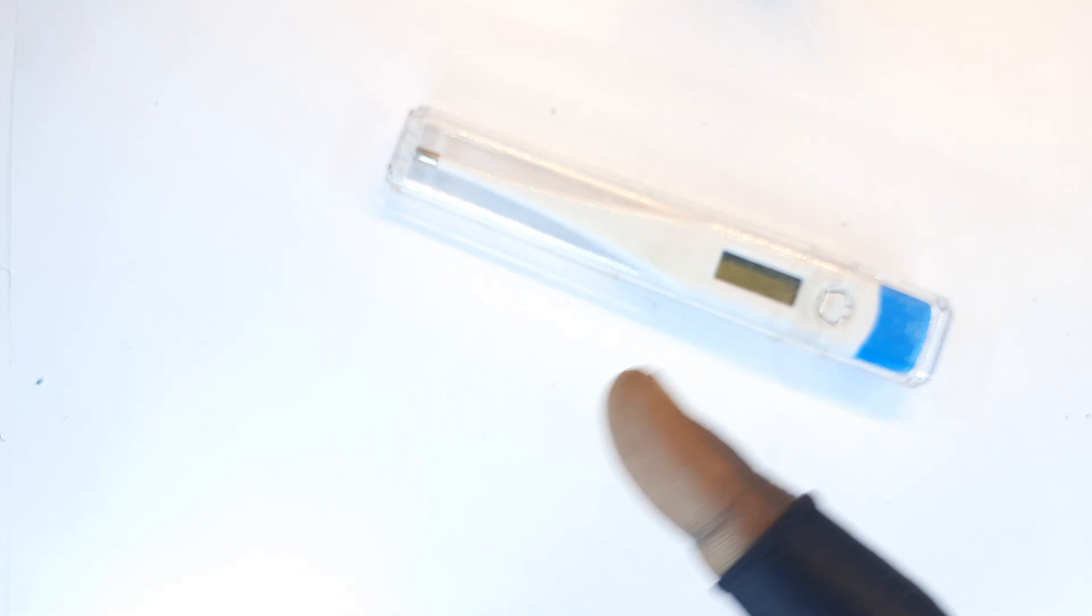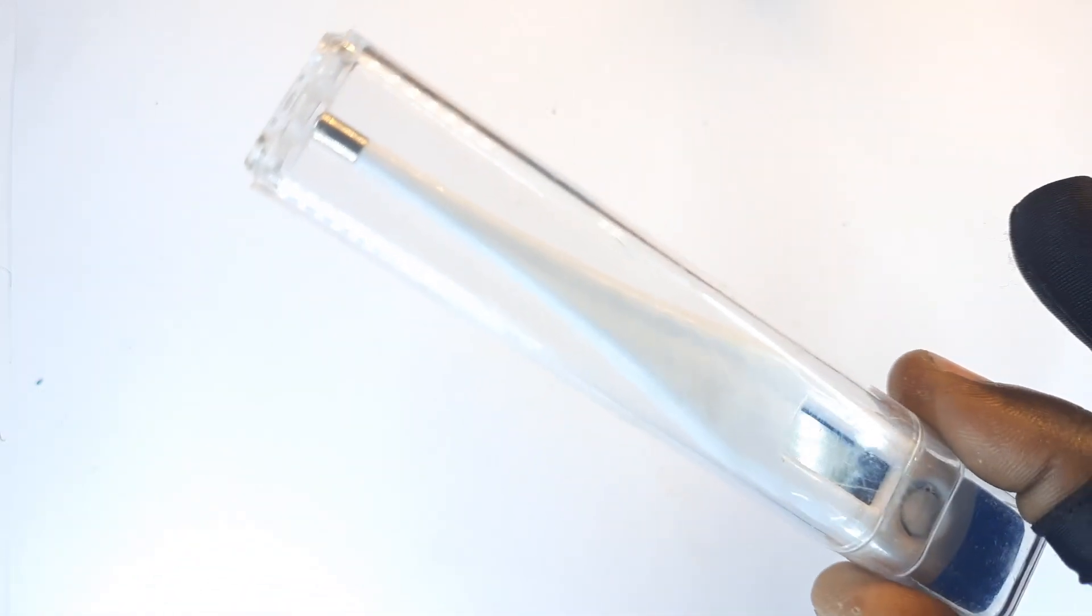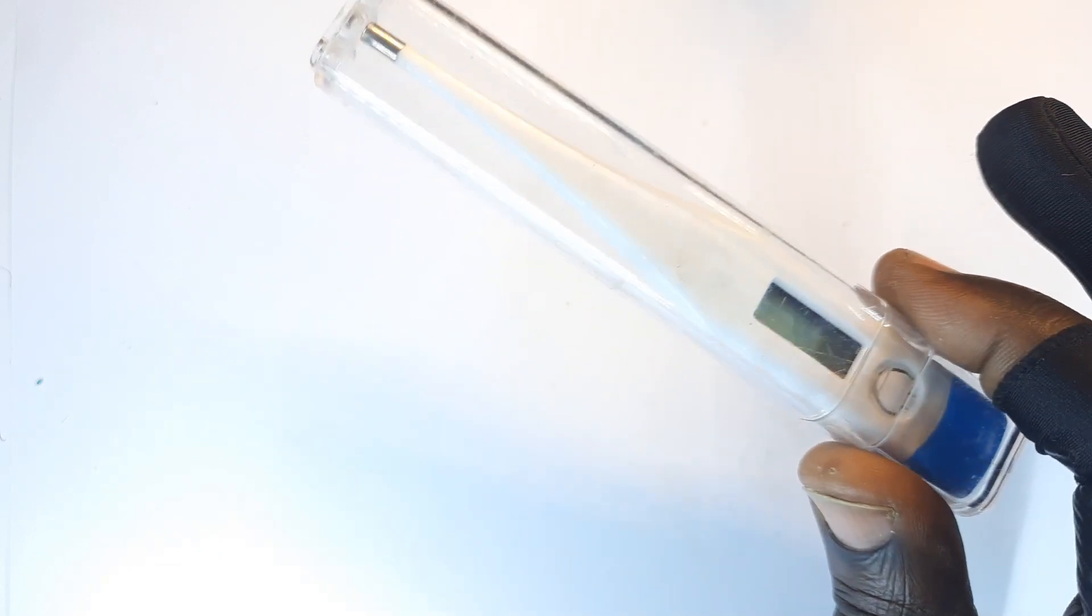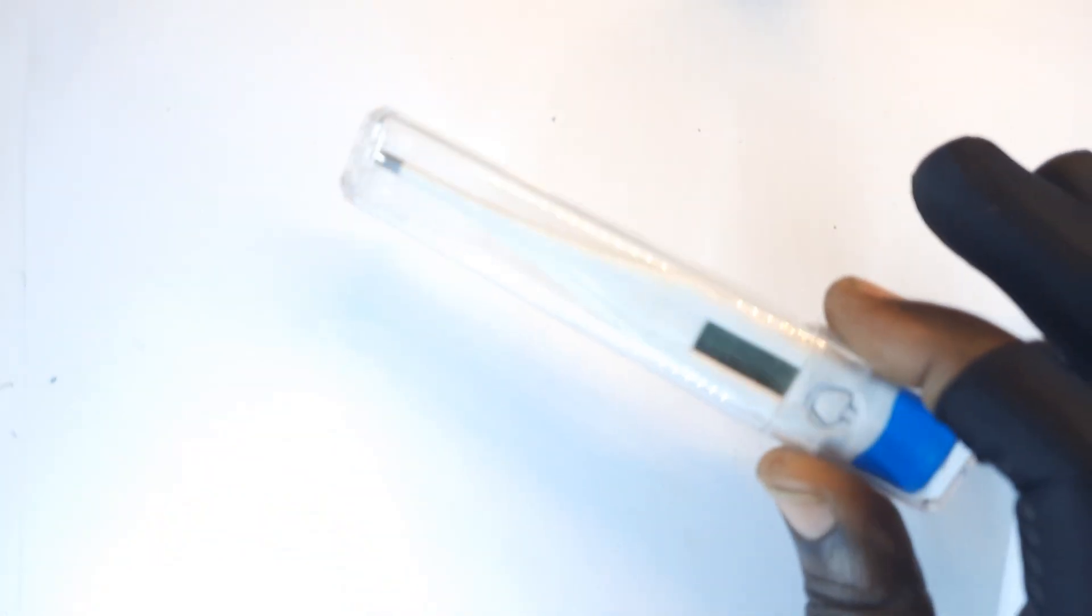Ideally, in the beginning, I bought this hoping that it will help me in my repair situations. For instance, I could modify it to measure temperatures up to 300 degrees C when I am soldering. But then again, I think it's not the perfect device to use.